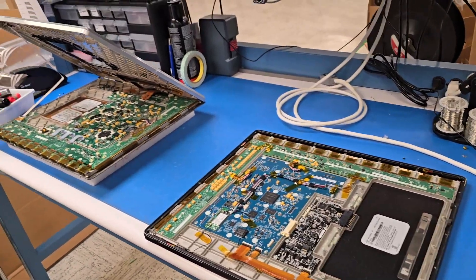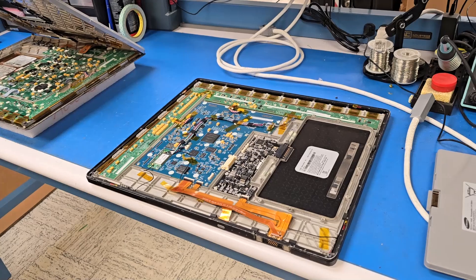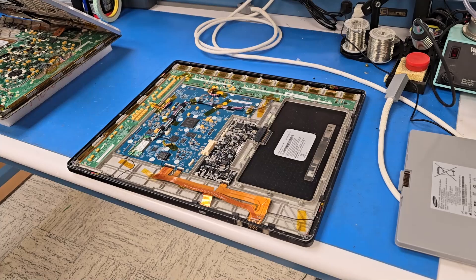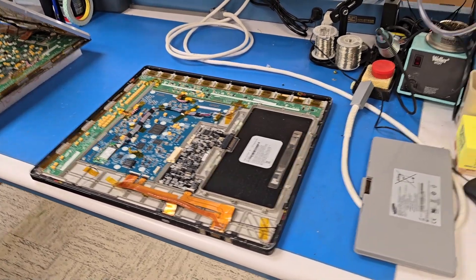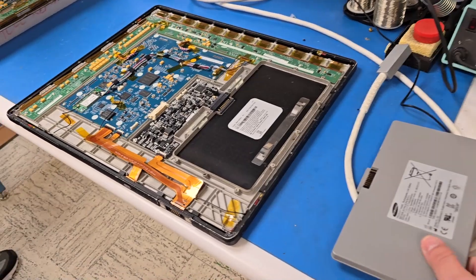This is what replaces x-ray film in modern day x-ray systems. The thing about these panels is that they are thin, lightweight, and they can be dropped. So they come in here and get repaired or examined in the Samsung facility, and we have the luxury of going behind the scenes to see how they work.